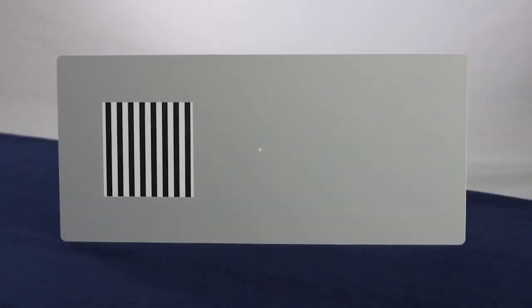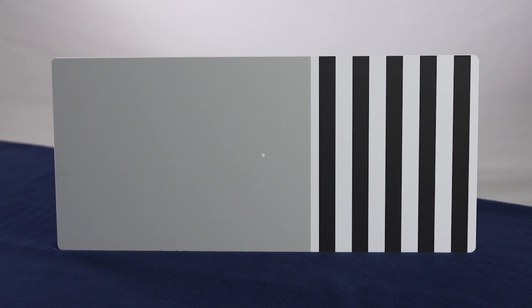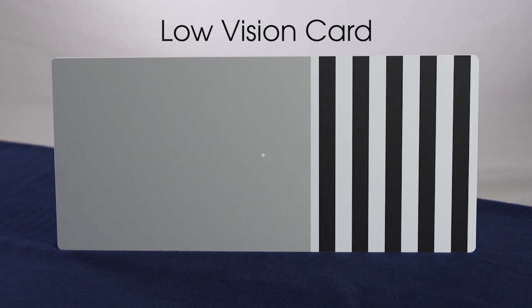Most rectangular cards have a single grating printed off to one side of the center. Printing the grating to one side of the card allows it to be presented either on the left or the right. An additional card has a grating nearly covering one half of the card. This card is called the low vision card. The final card is a blank gray card without a grating.